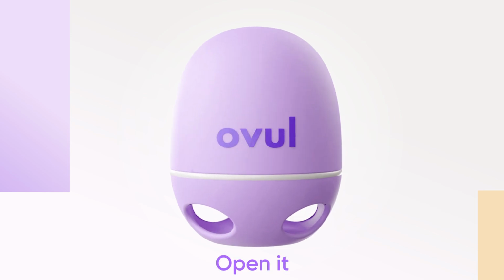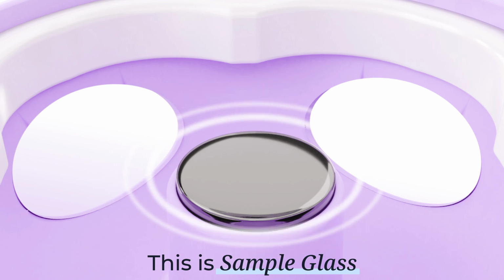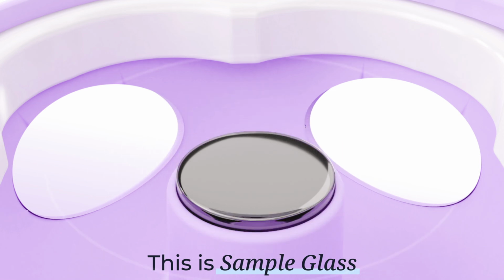Open the Ovul device. Just pull it up and it will open. There is a sample glass on the bottom part of the analyzer. You will need to put your saliva drop here.